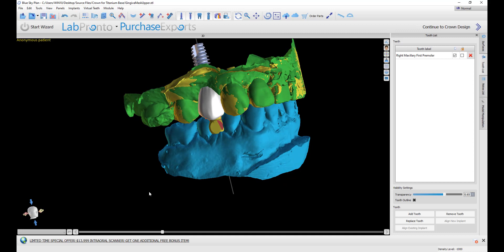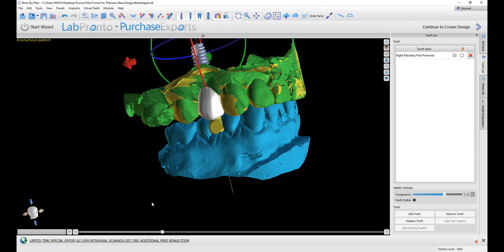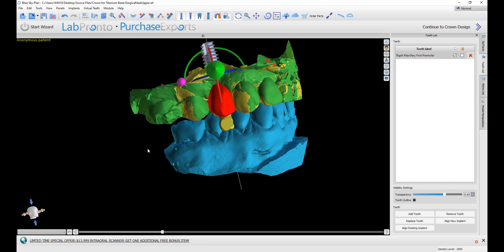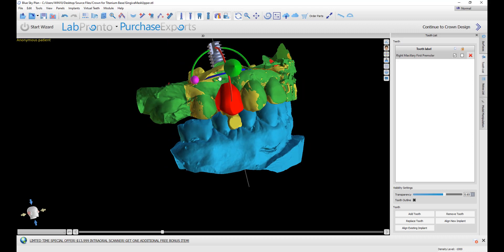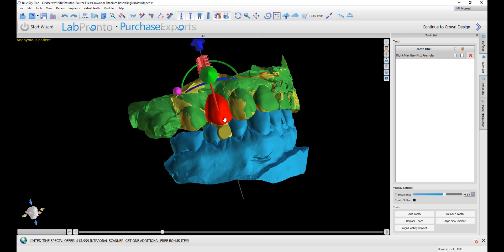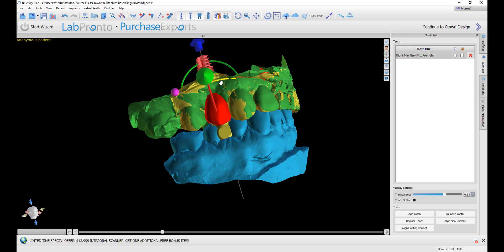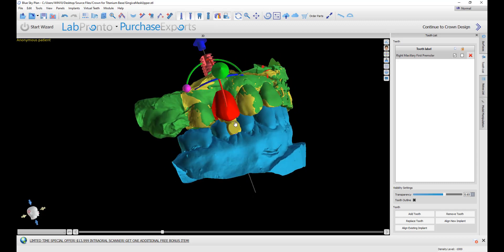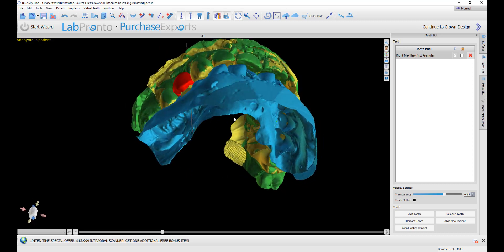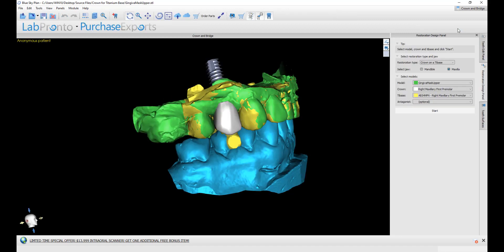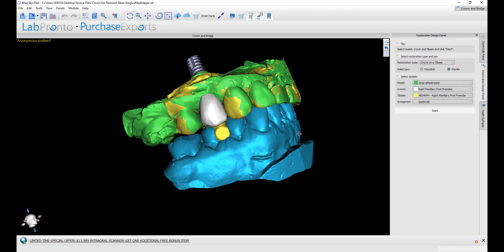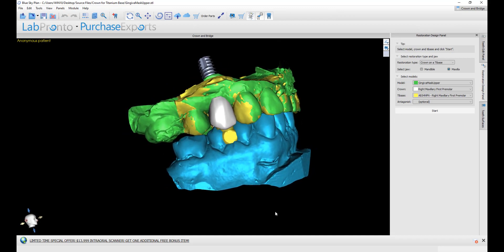Before continuing with our crown design, we could fine tune the placement of the tooth. Our digital scan body is no longer relevant, so we could toggle that off by clicking the hide scan body button in the vertical toolbar. Then we could click on the tooth and do any modifications in terms of rotation and movement. Using our left mouse button, we could simply grab and drag the tooth and move it. Or we could go over to the widget and rotate. It's a good idea to left click once on the tooth to activate it prior to rotation to make sure the widget is active and doesn't slip away. Once we're happy with our tooth positioning, we could click continue to crown design. We'll have an opportunity to fine tune the placement and the software will modify the size as we go along, so that could be revisited later.